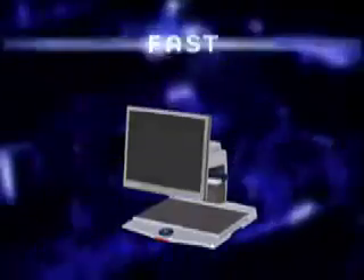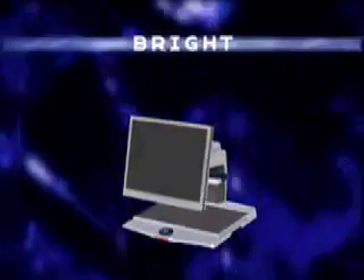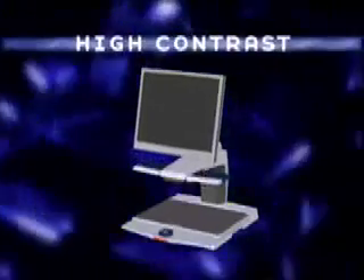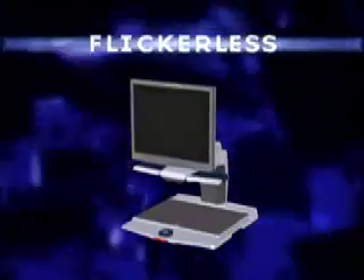Simply tilt the flat screen to eliminate any glare or reflections and to save your neck and back. Another option is a 17-inch TFT screen. The screen is easy to adjust. Off-the-shelf products cannot compare with this high-performance screen. Its attractive design makes the Clearview Plus very suitable for any location. The platform of the Clearview Plus is ready to take on any future features.